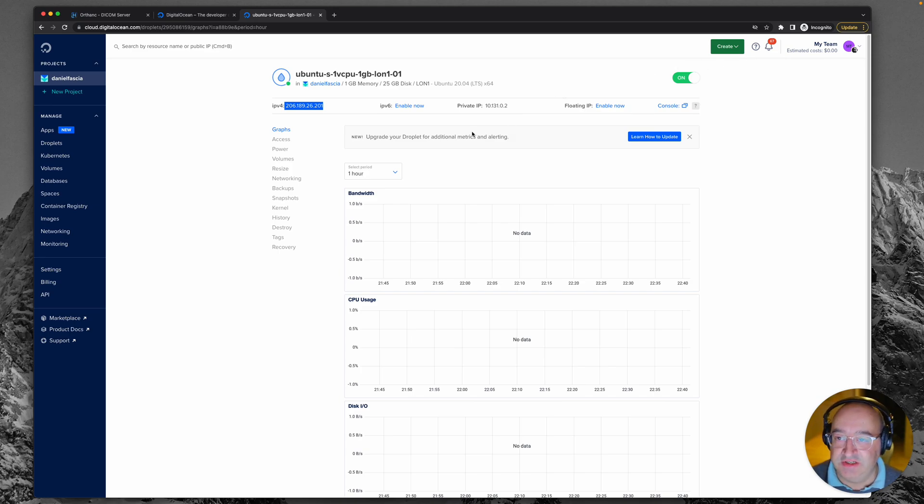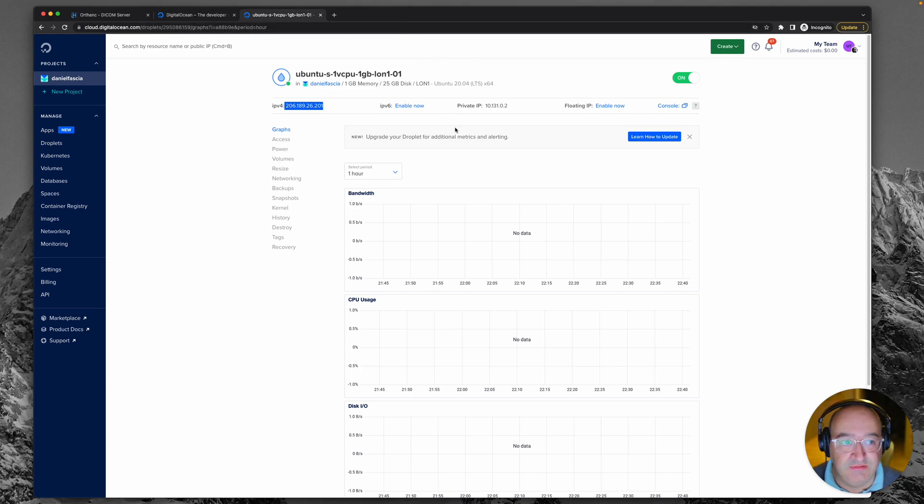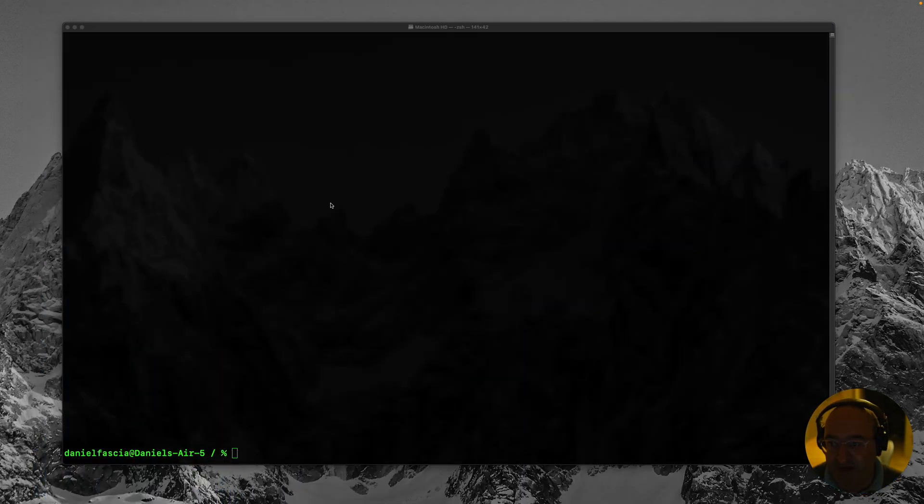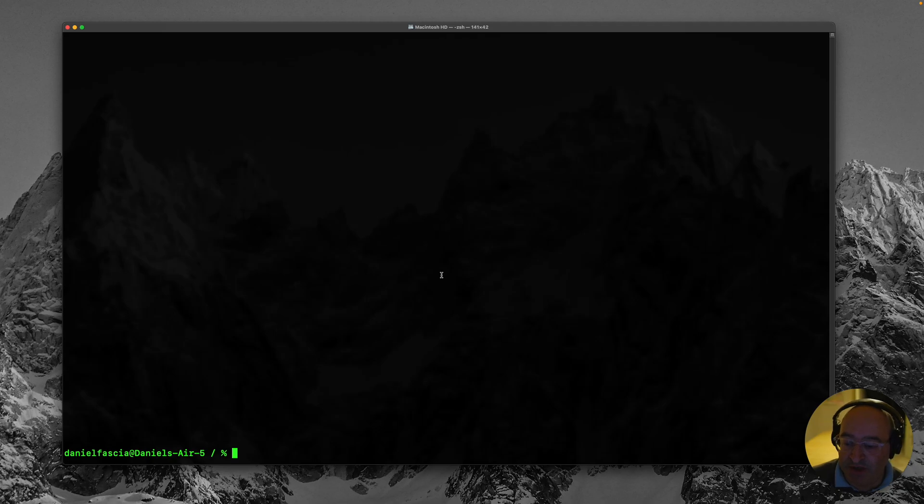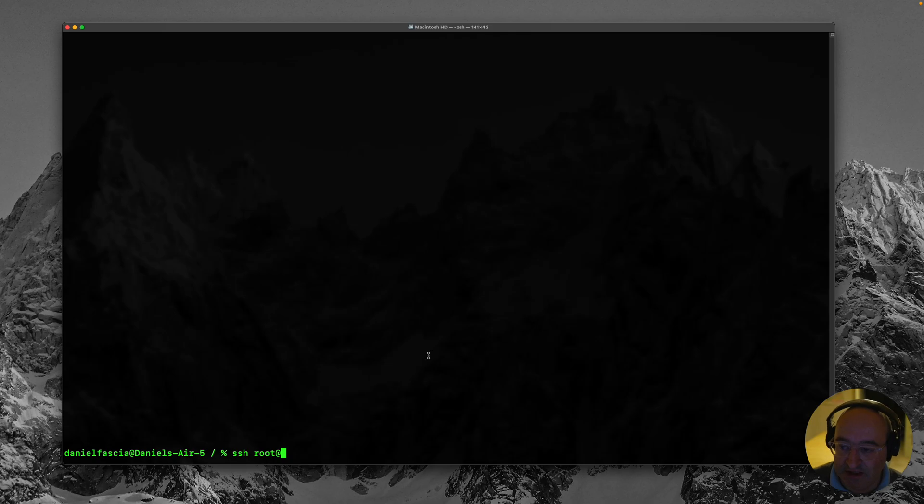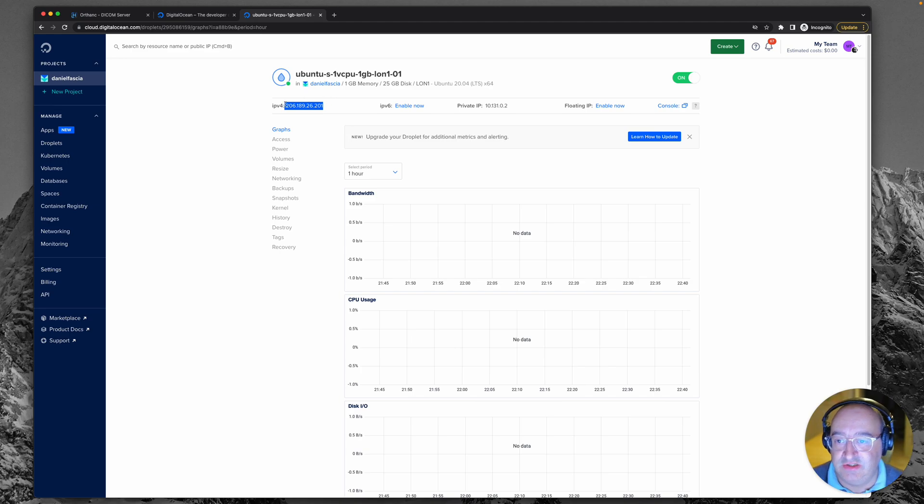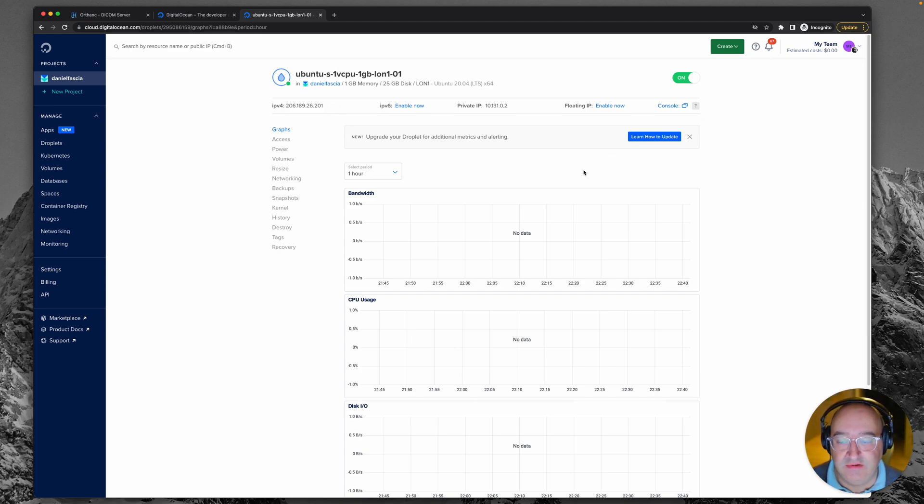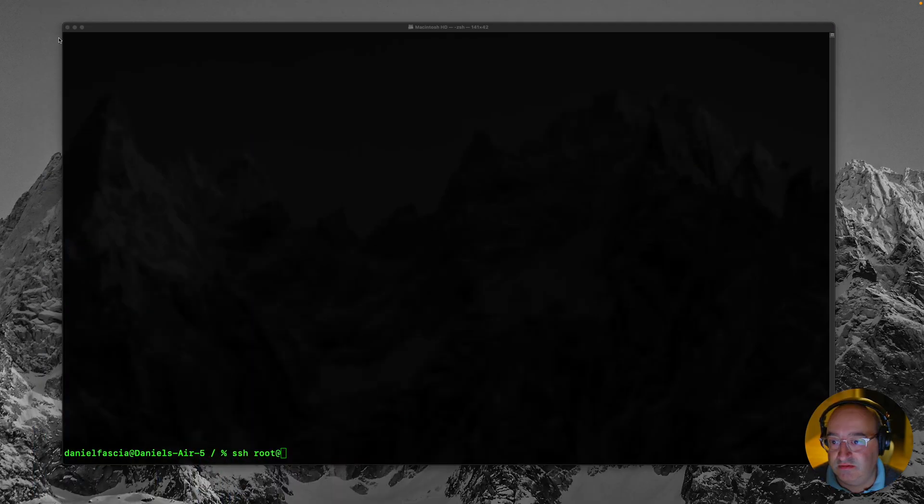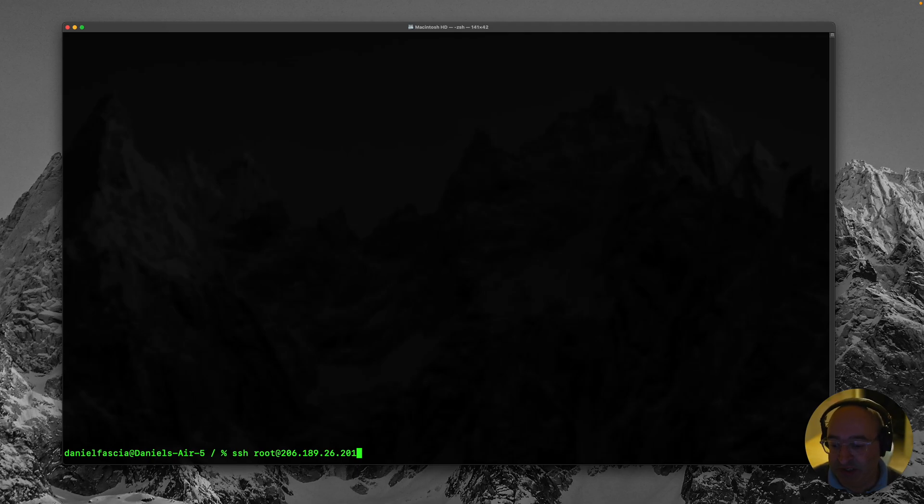So the next thing we're going to do is switch over to the terminal application. I'm using OSX, it's called terminal.app or the equivalent in whatever system you are on. So I have that here in the background and we're now going to use a way to remotely connect to that server which we've just created. We're going to type the command ssh root at, and now we really need that IP address. So let's go back to here, copy this, and we'll put that after the terminal so it's saying we're the root user with that IP address.